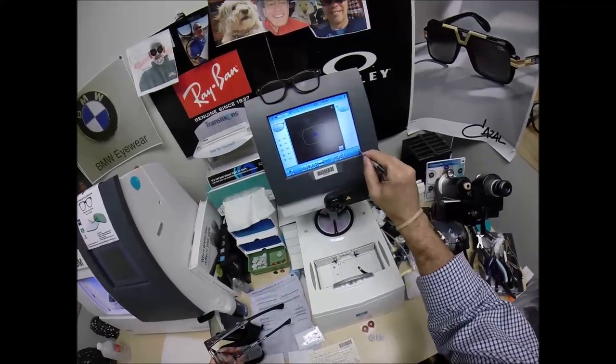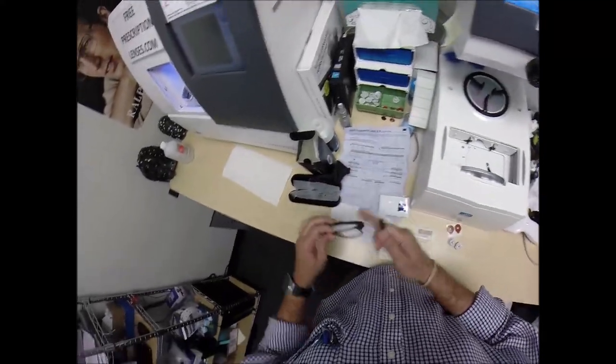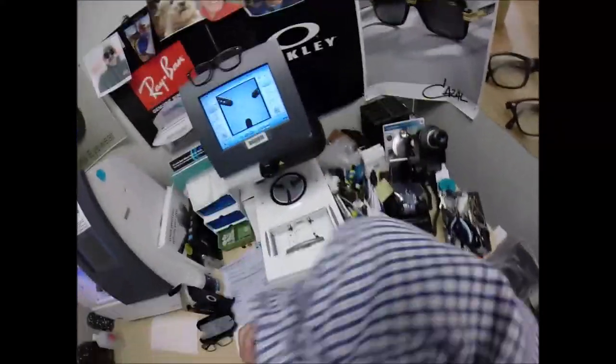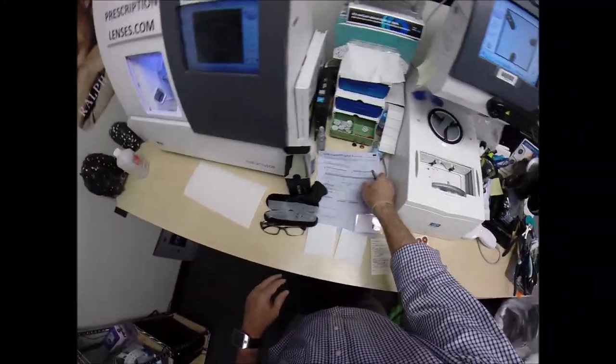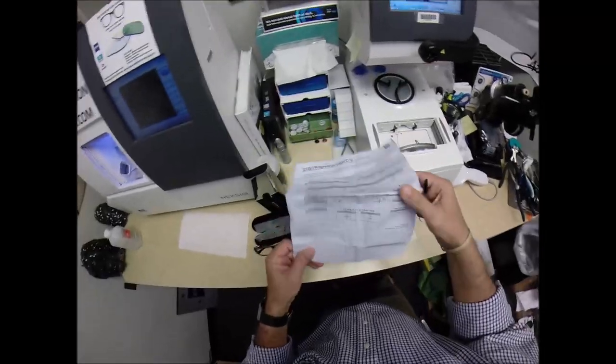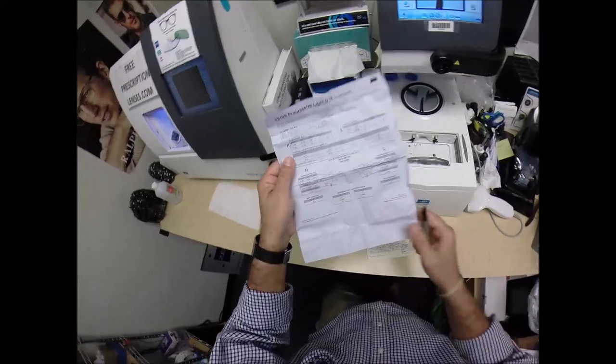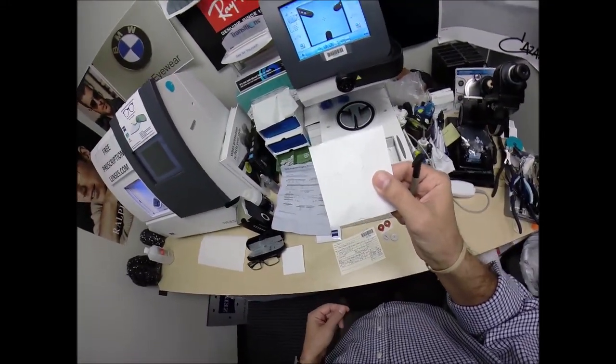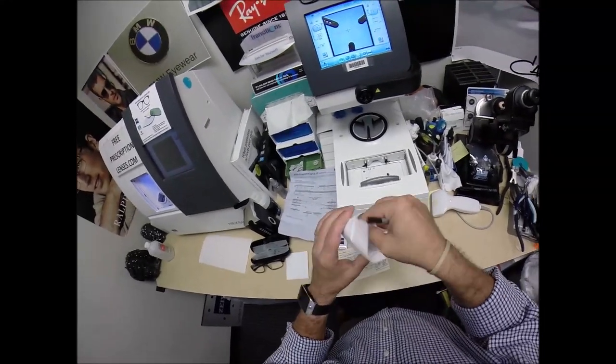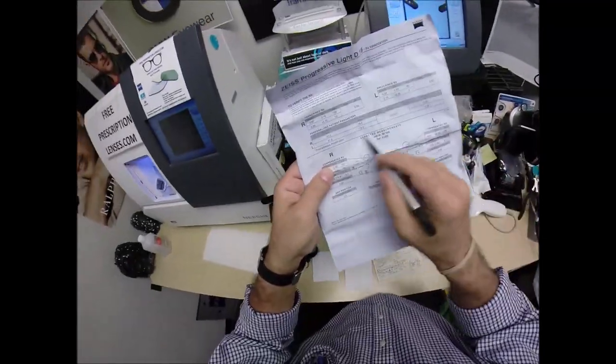So we're going to move on to the next screen because I can put this down there. I won't need it anymore. Excuse me, a little sawdust here in the lab. Don't worry, it's not COVID. Speaking of which, we've had our first COVID fatality. Don't worry, it's not a real death. It's just the death of the printing capabilities. Now Zeiss did send this out, but normally they include packets with all your frame, your lens information on there also. It just comes in the plain white wrapper today. Sorry about that, but you do get all the other accoutrements and I will highlight that for you as we get to that.